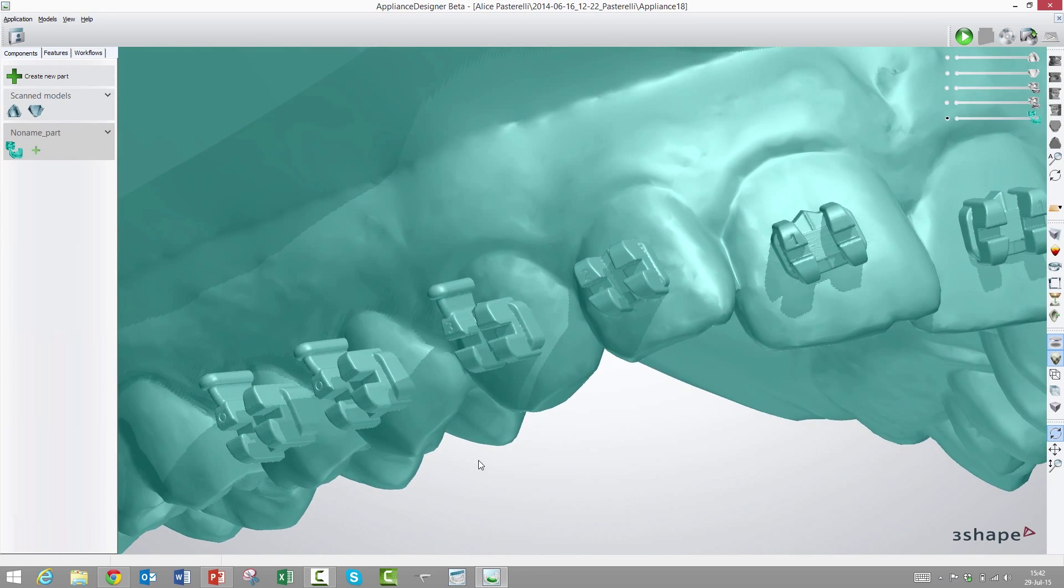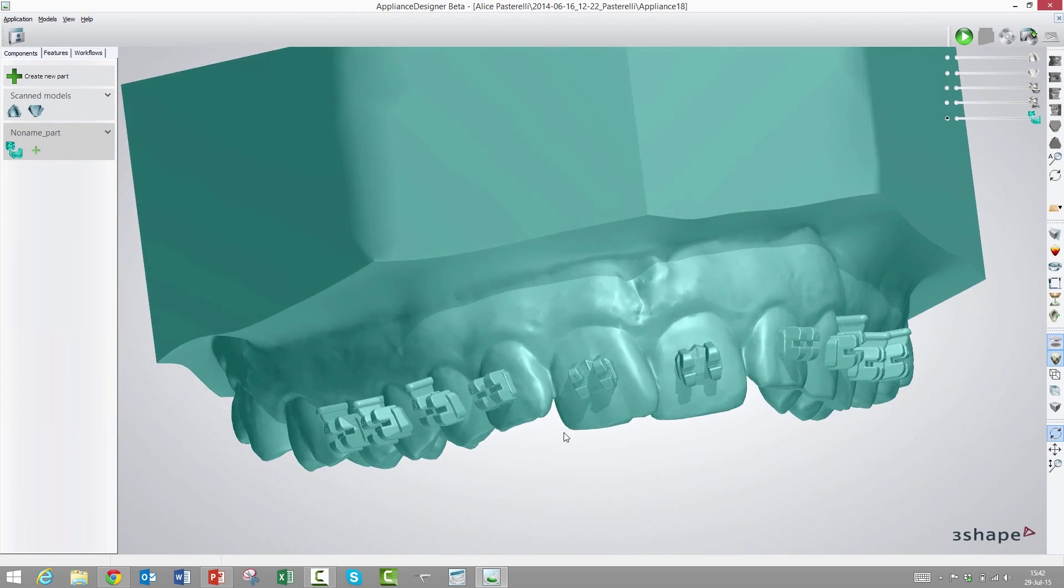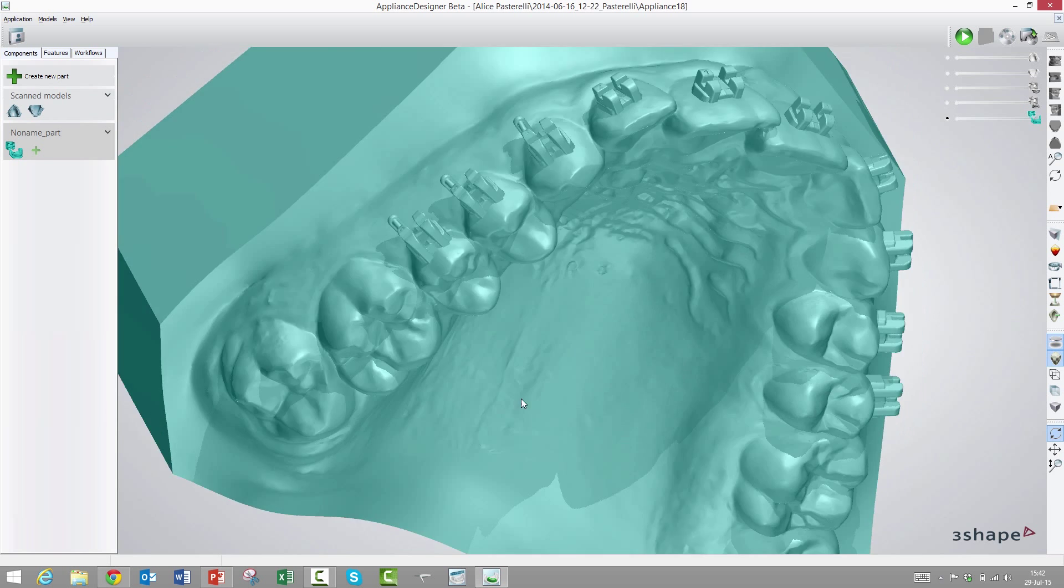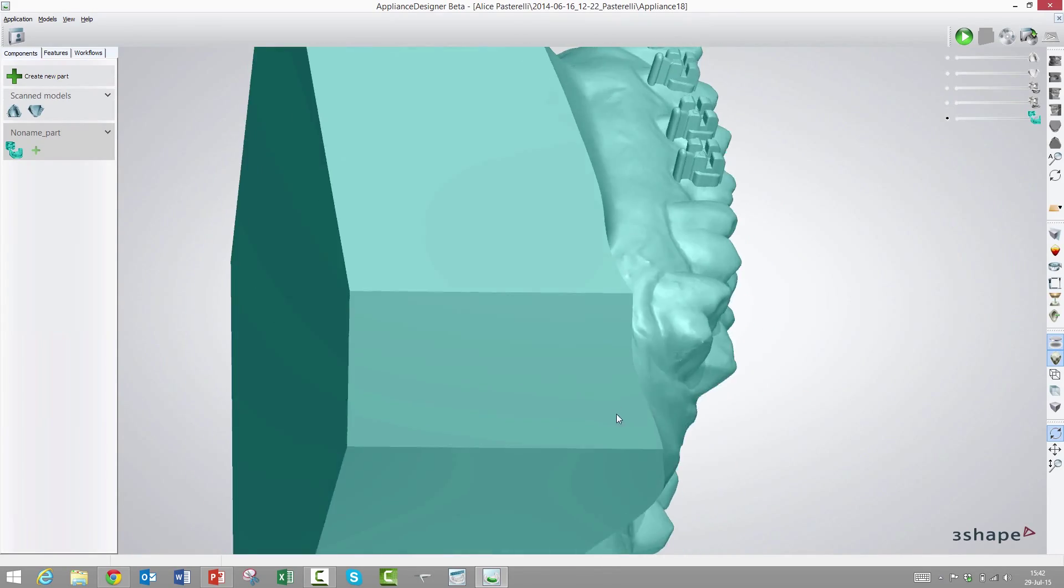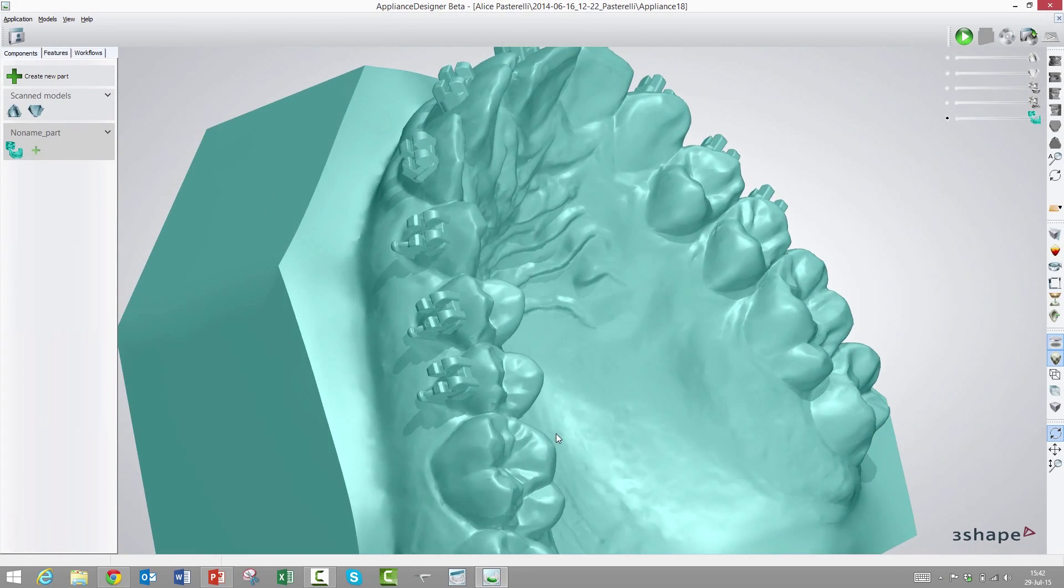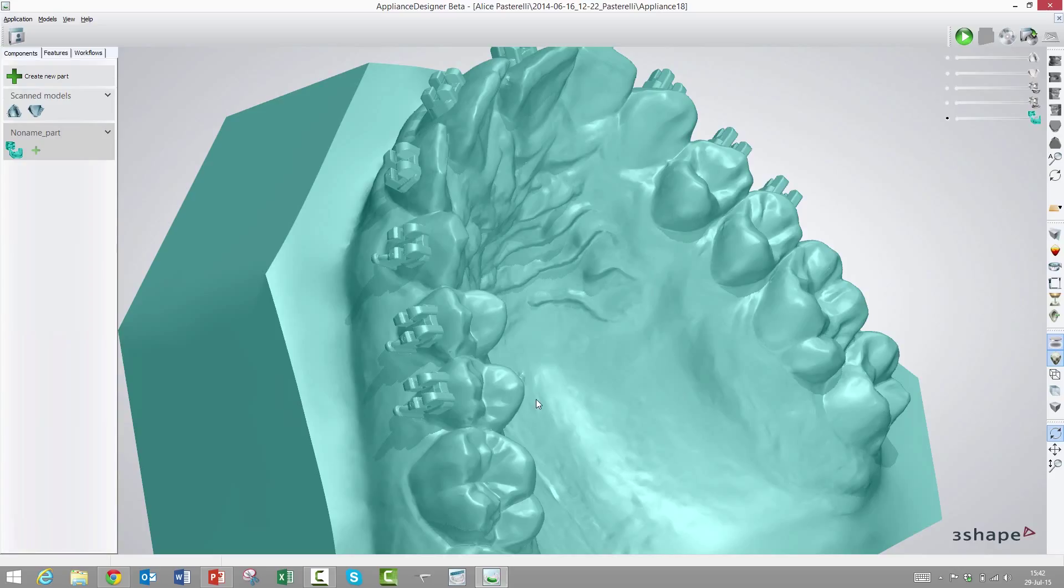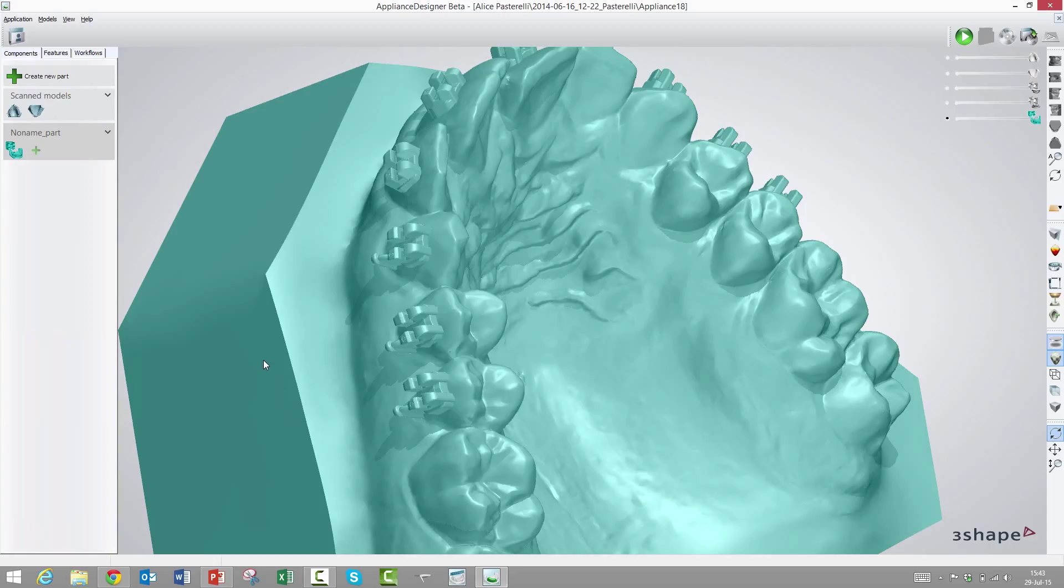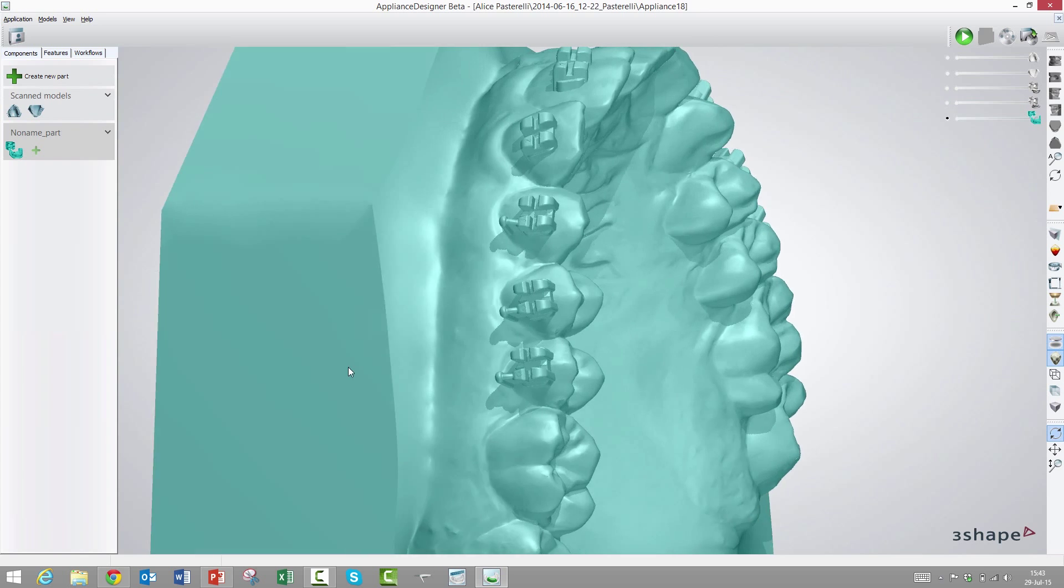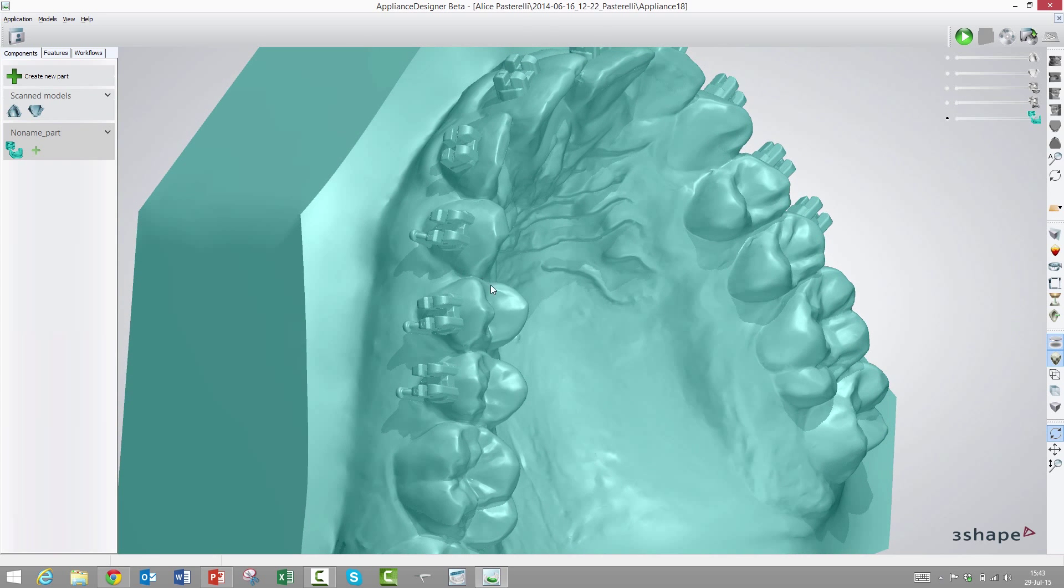The final transfer option is directly printed trays. It would be really cool if you didn't have to first print this entire model, which uses a lot of material and time, and then vacuum press a tray on top of this and cut it out afterwards. We have made a design option so this is possible. The only thing we need is a short-term biocompatible material. There are materials on the way and should be on the market within a few months. Contact your 3Shape reseller for the latest updates. That's quite a game-changer for indirect bonding.